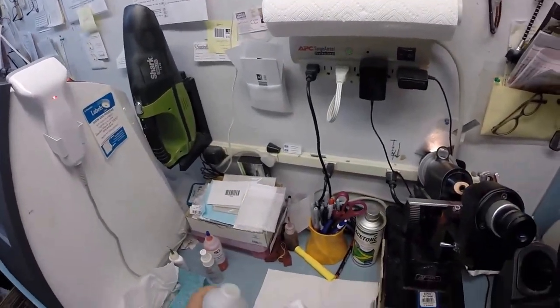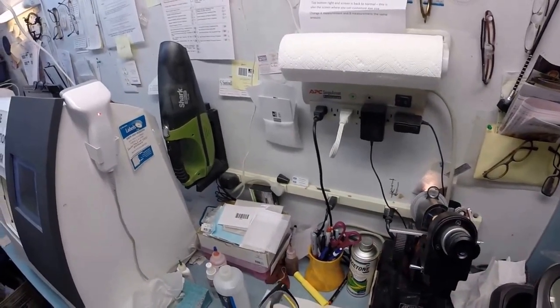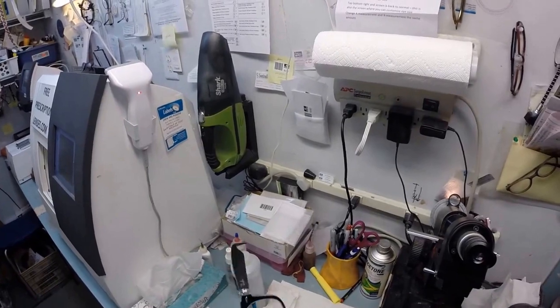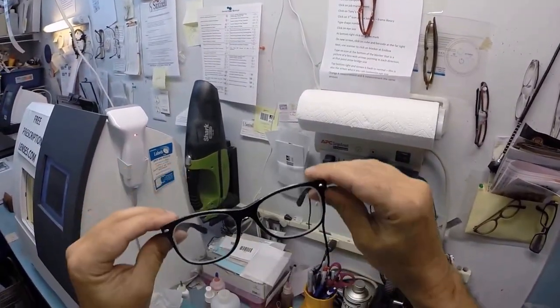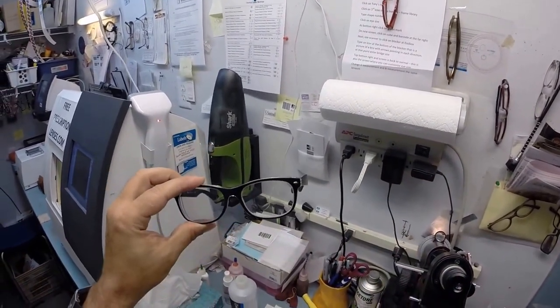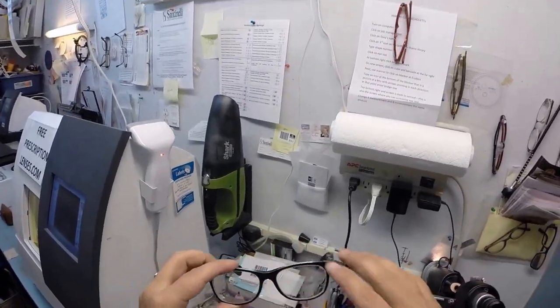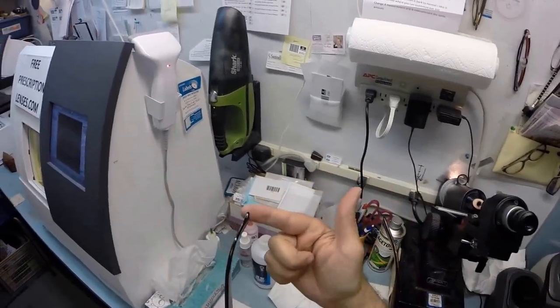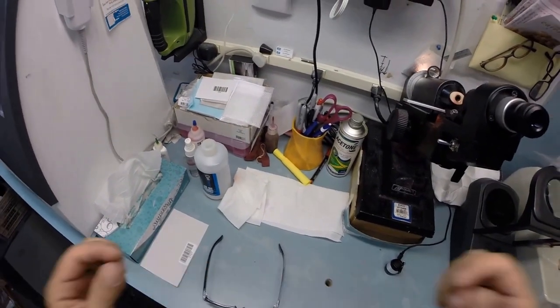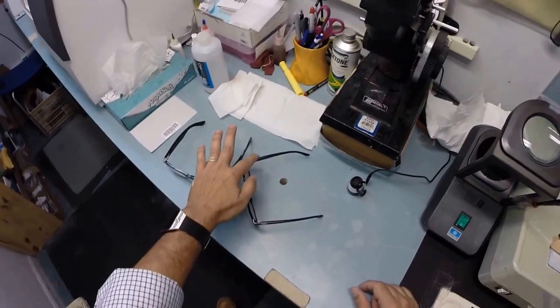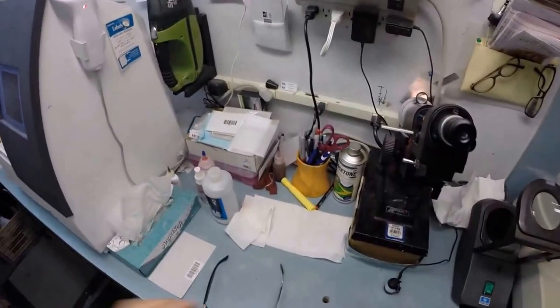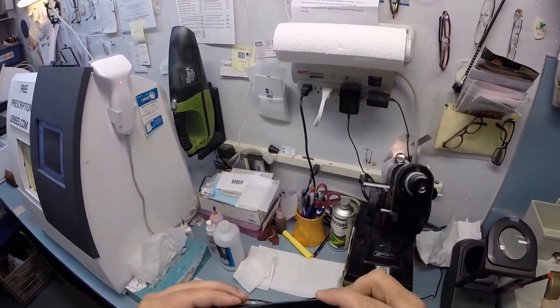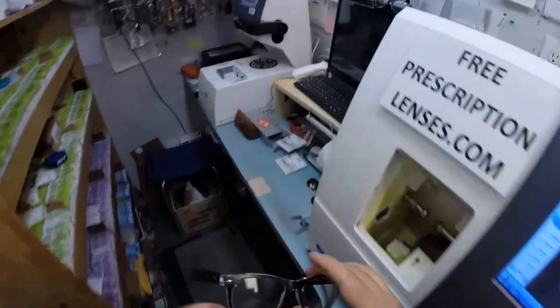Here's the point in every video where as I clean your lenses, I mention to you: when I ship these to you - and of course free shipping anywhere in the United States - when you get these in the mail there is a small chance that these could fit either too loose or too tight. However, there's an 80% chance that one side is gonna sit higher than the other. That is because 80% of people have one ear that is higher than the other and I'm no exception. Because of this statistic, 99% of all optical shops would do free adjustments if you ask them. But I'm gonna get these in standard alignment first, also known as a three point stance. The three points are one, two, and the bottom of the frame being three. I set it on the counter and press down - there is no wobble. When I take off mine and I set them on the counter they wobble because my right ear is lower than my left ear. Flip these over, press down - there is no wobble. I close each temple to make sure they overlap perfectly and they do, and they're not askew in any way. Check the hinge tension on each hinge and that is perfect.